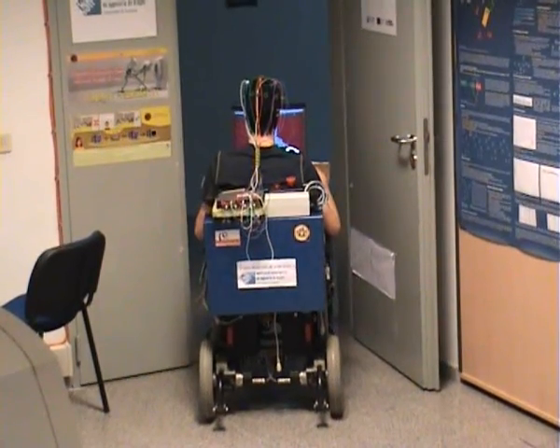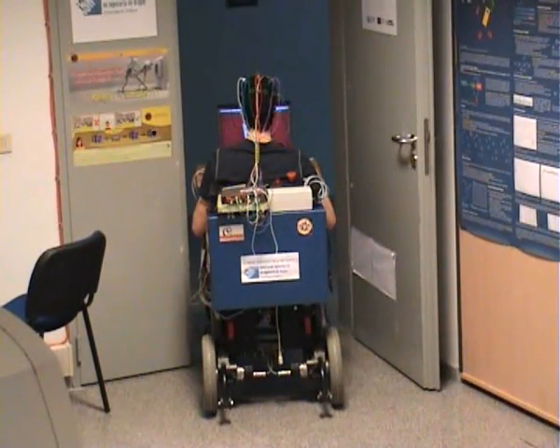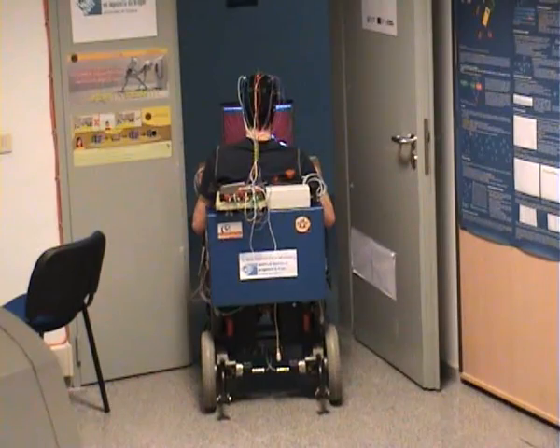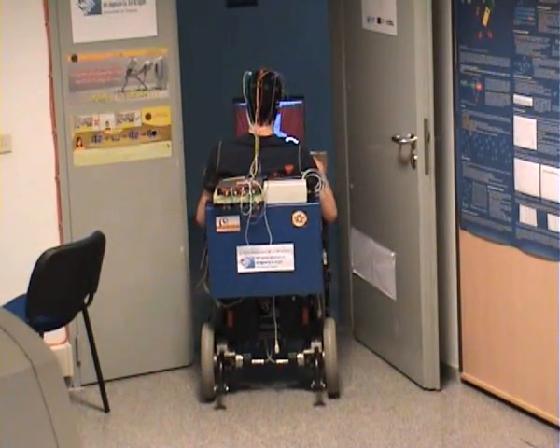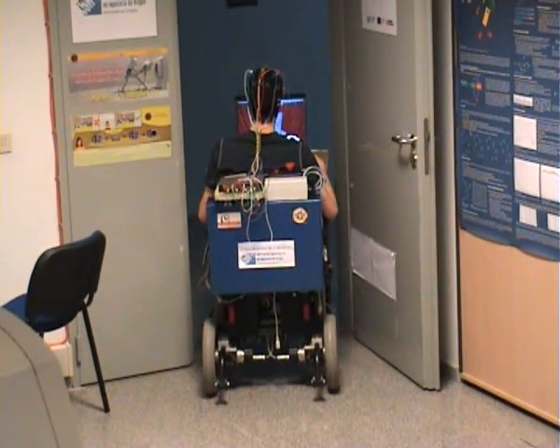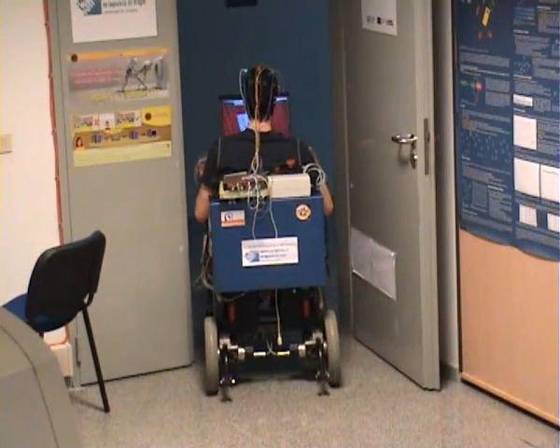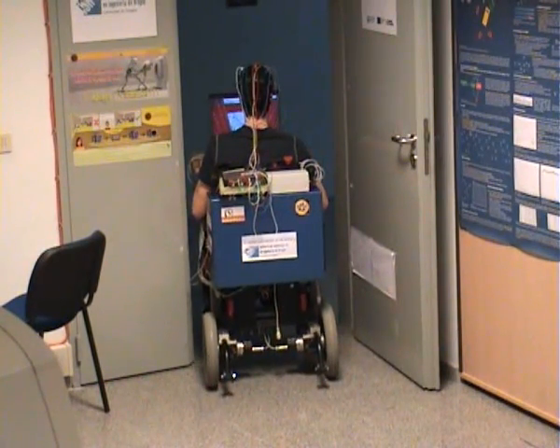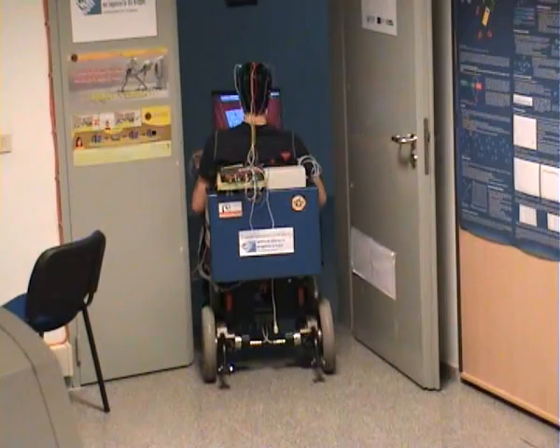Another advantage is that this navigation technology is able to deal with complex and dense scenarios. One typical situation that exploits this technology appears when crossing a doorway, where the system needs to pass through a narrow space while maintaining a security distance.